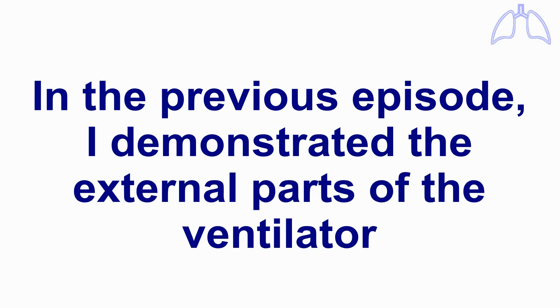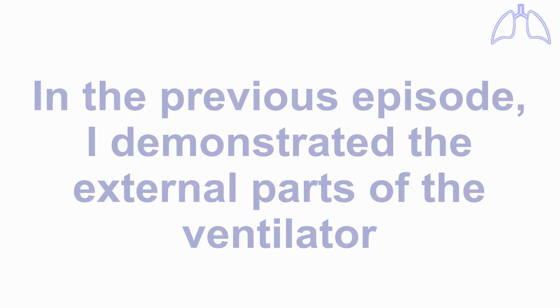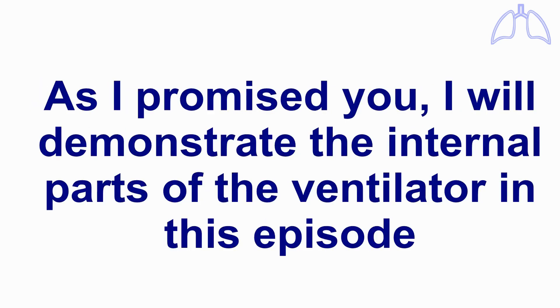In the previous episode, I demonstrated the external parts of the ventilator. As I promised you, I will demonstrate the internal parts of the ventilator in this episode.